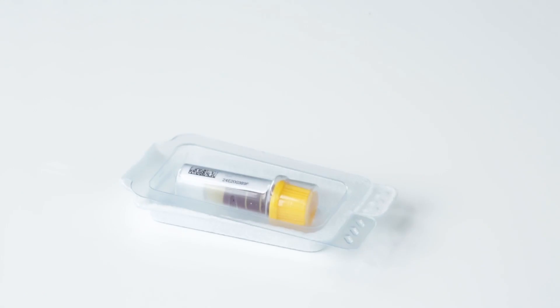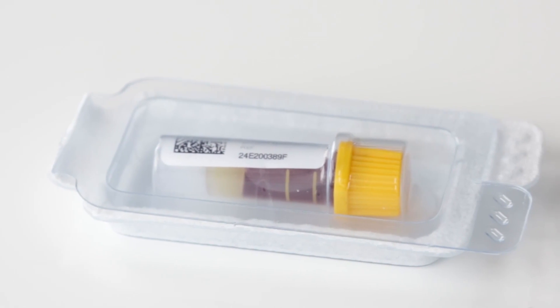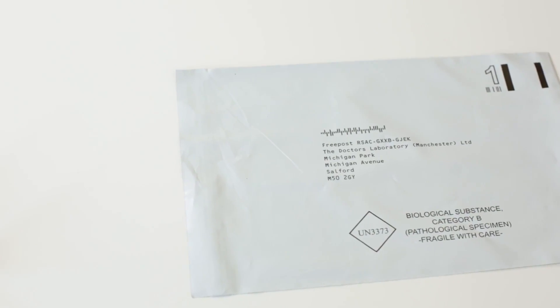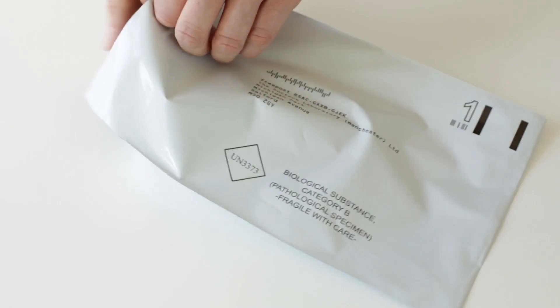Your samples are already labelled with a unique code, so you don't need to write anything on them. Put your samples in the grey prepaid return envelope along with the white lab card.